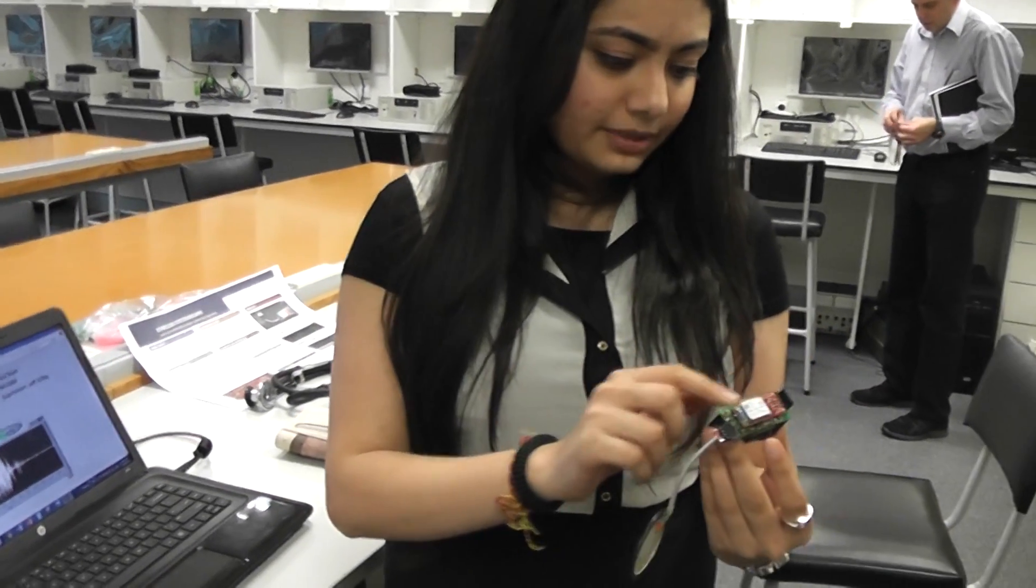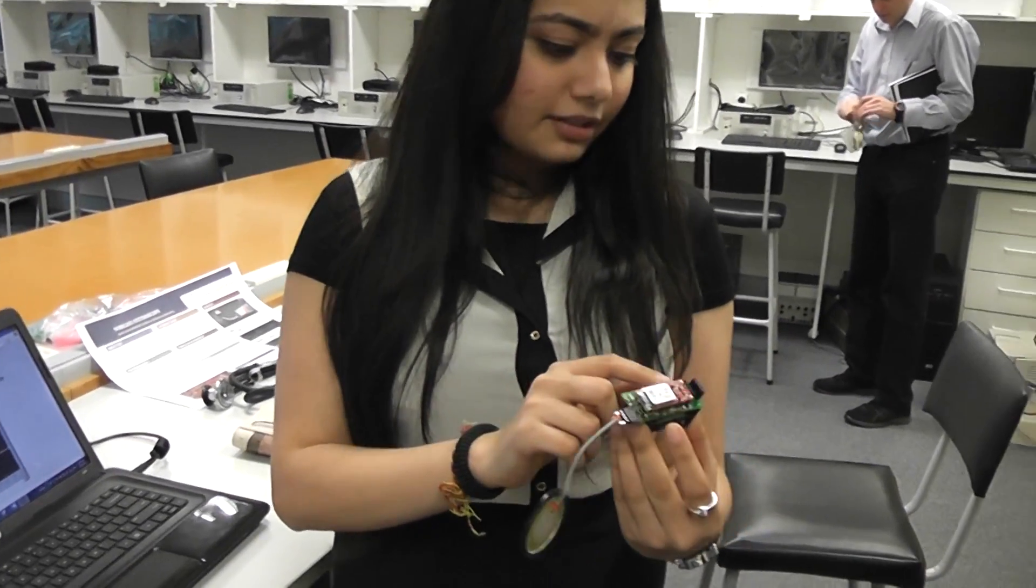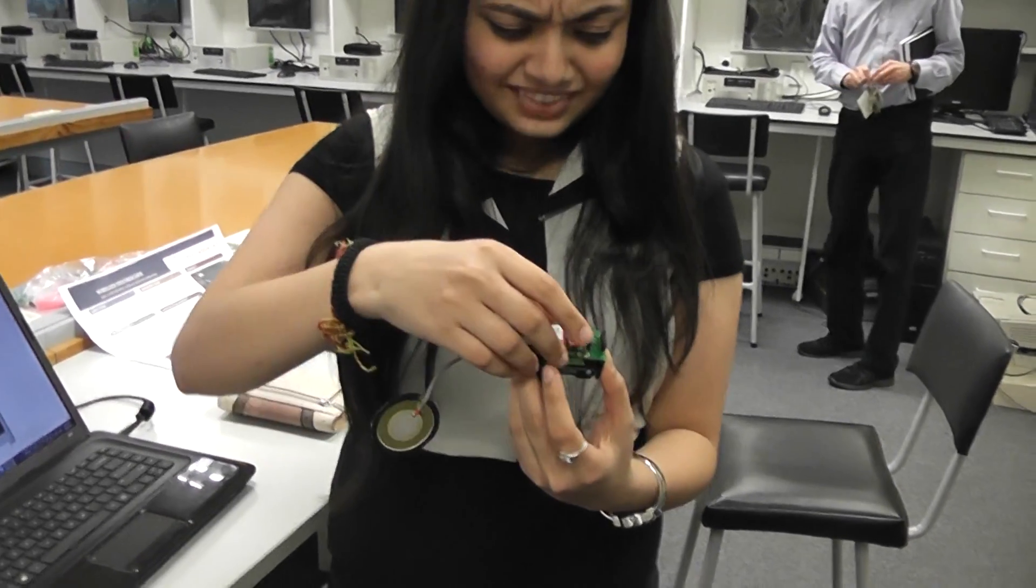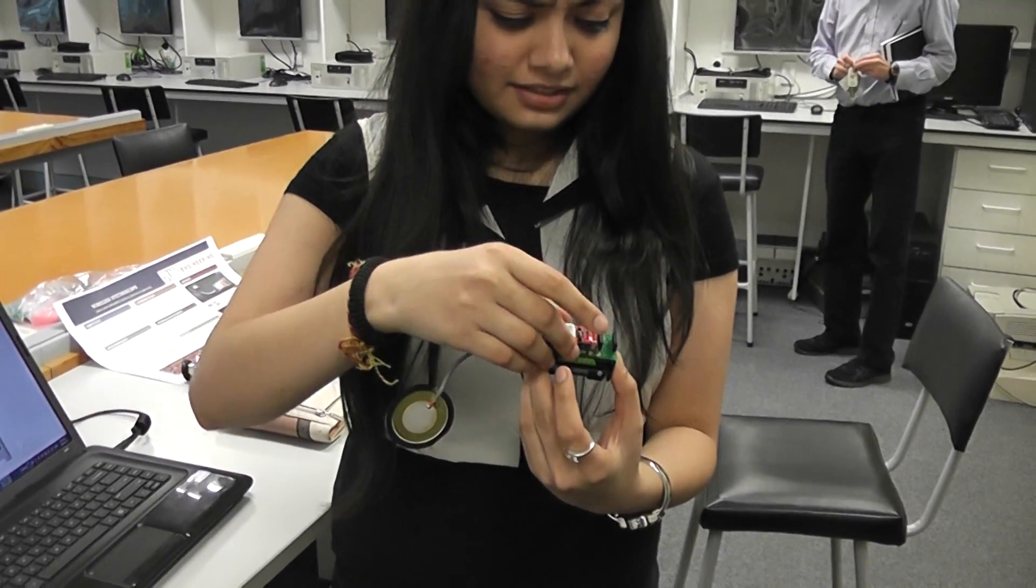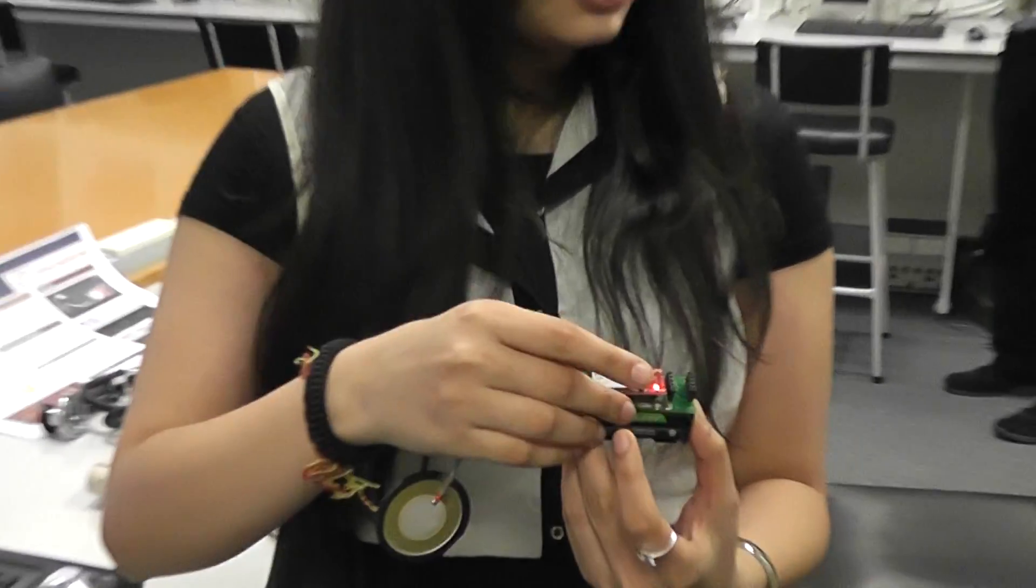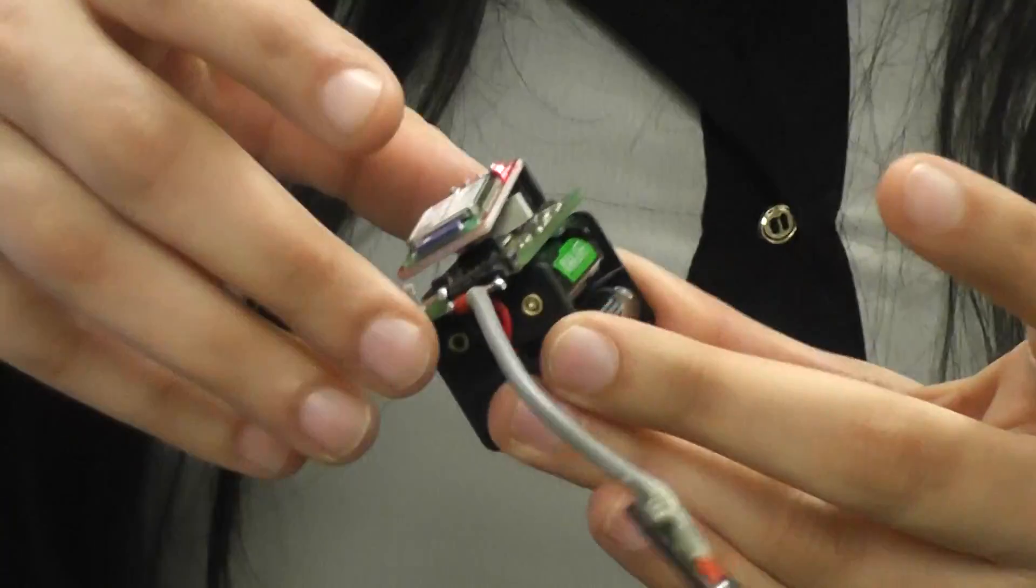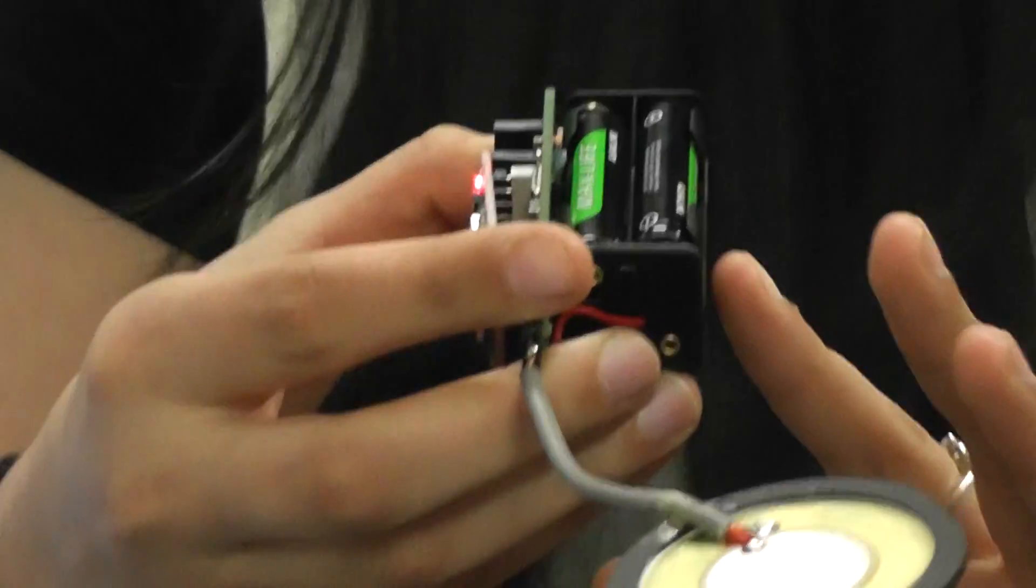So at the bottom layer is my circuitry, the PCB, and the top one is the Bluetooth module. I just placed it on top of each other to reduce the size, and the back side has the batteries. I need six volts, so it's four AAA batteries.